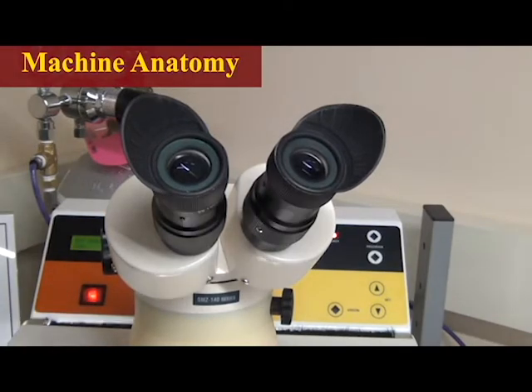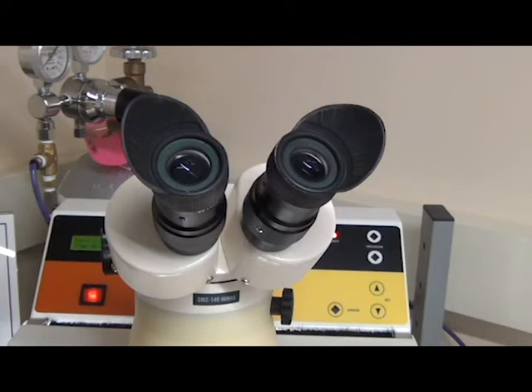The microwelder can be used on a variety of materials such as titanium, non-precious alloys, and precious alloys. They can also be used in combination.